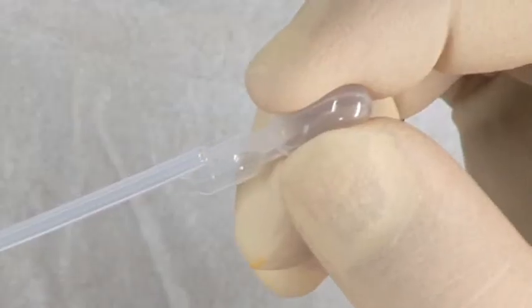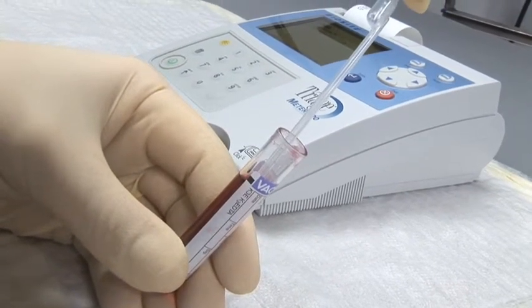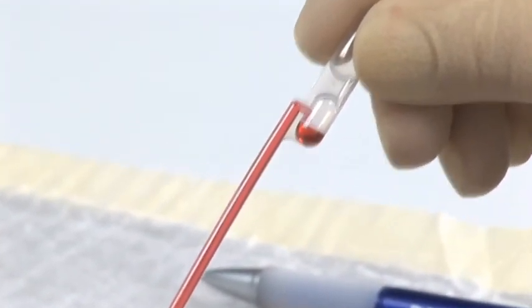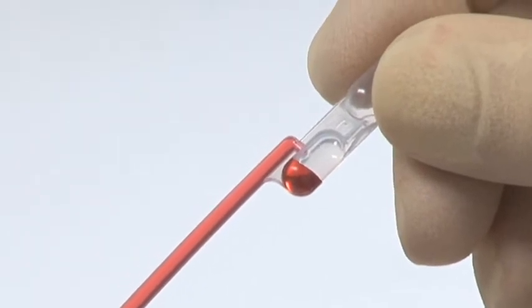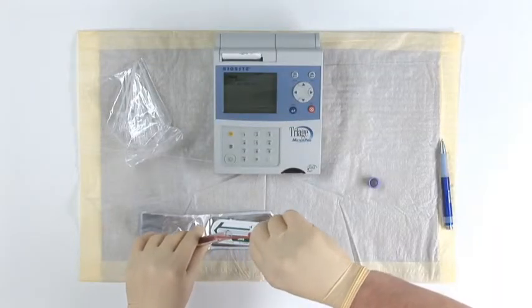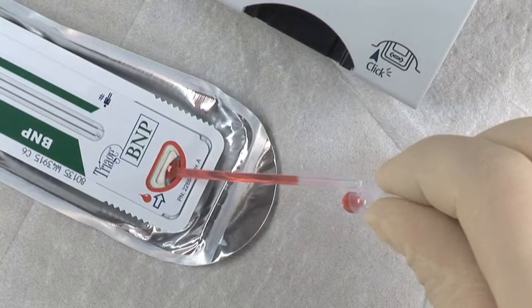To ensure the correct sample volume, depress the bulb of the pipette completely. Insert the tip of the pipette into the sample and release pressure on the pipette bulb slowly. There should be no bubbles visible in the body of the pipette, and some sample should backfill into the small lower bulb as overflow. Once the pipette is filled with sample, withdraw and slowly inoculate the sample port of the device by gently depressing the large bulb on the pipette.